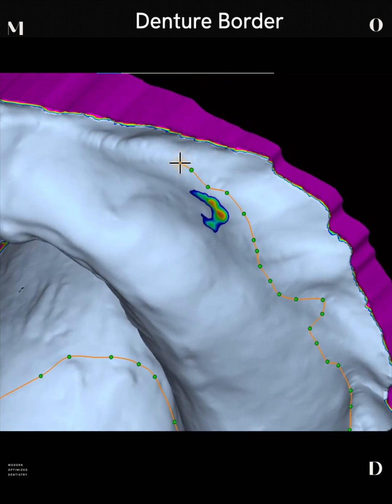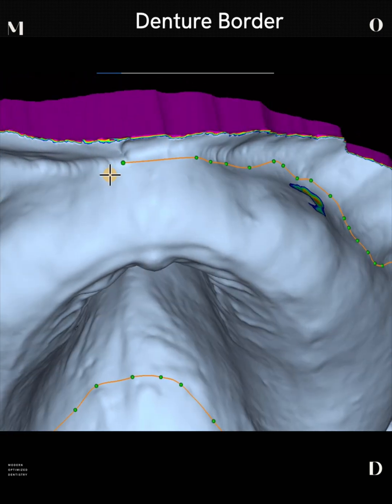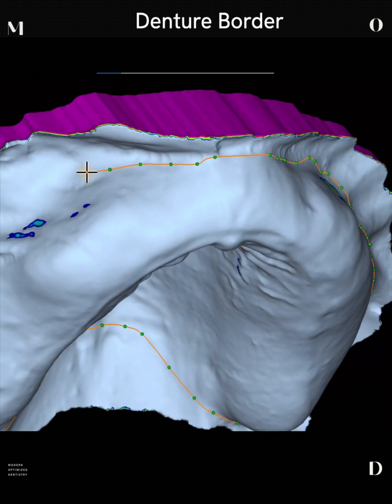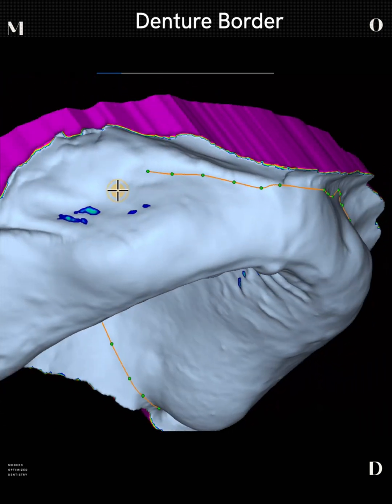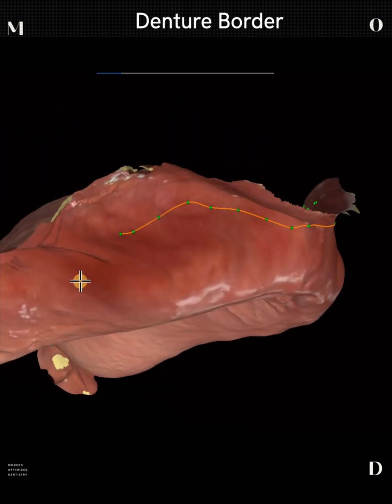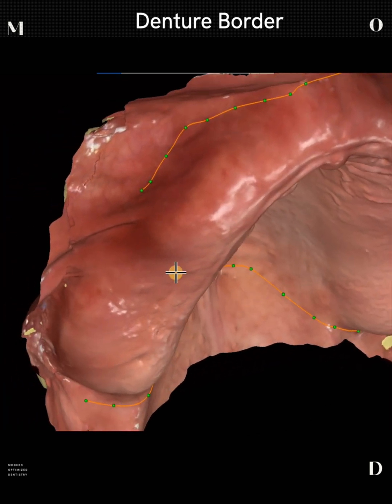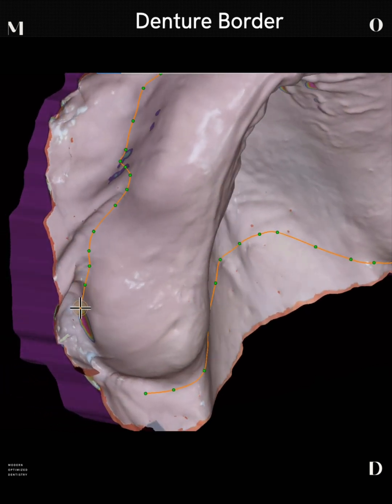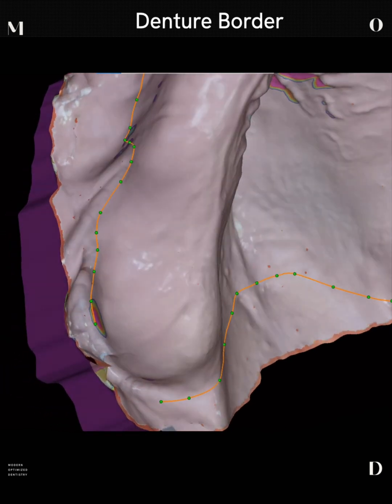If you look really closely, you can actually see these tiny little folds where the buccinator muscle attaches to the maxillary ridge — these little micro pleats all the way around. If you get lost, you can always turn off your baby blue model and go back to your true color intraoral scan and look for that highly vascular structure all the way back around.